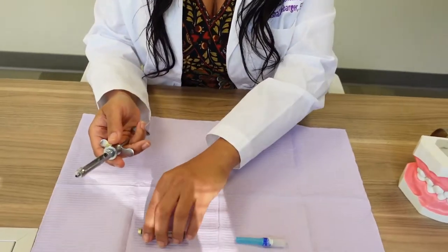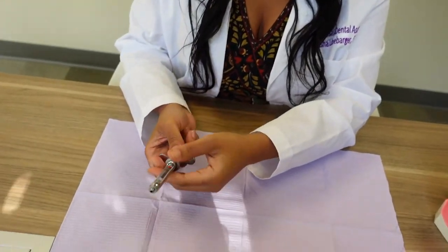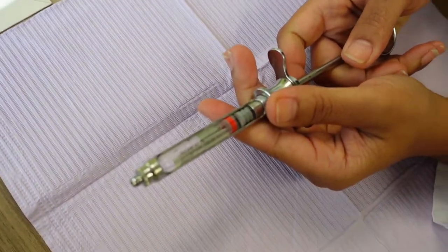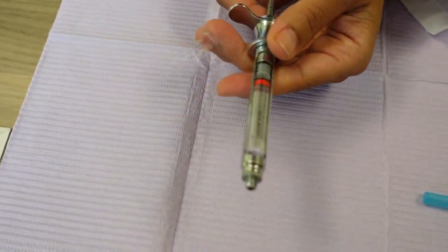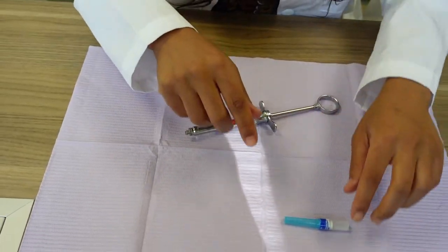Now this is an aspirating syringe, of course we know. This is the actual anesthesia. Put it in. Now of course when I'm doing this I will usually have gloves on when I'm working with a patient, so this is just a total demonstration.